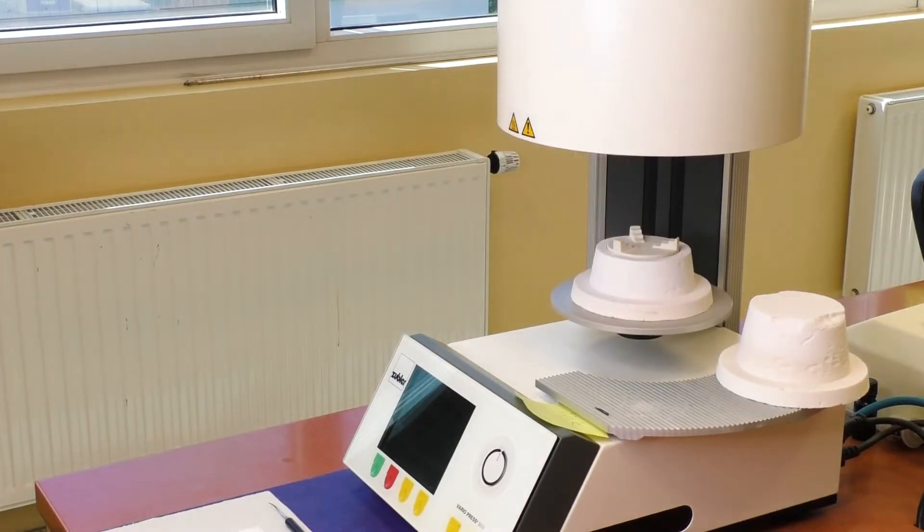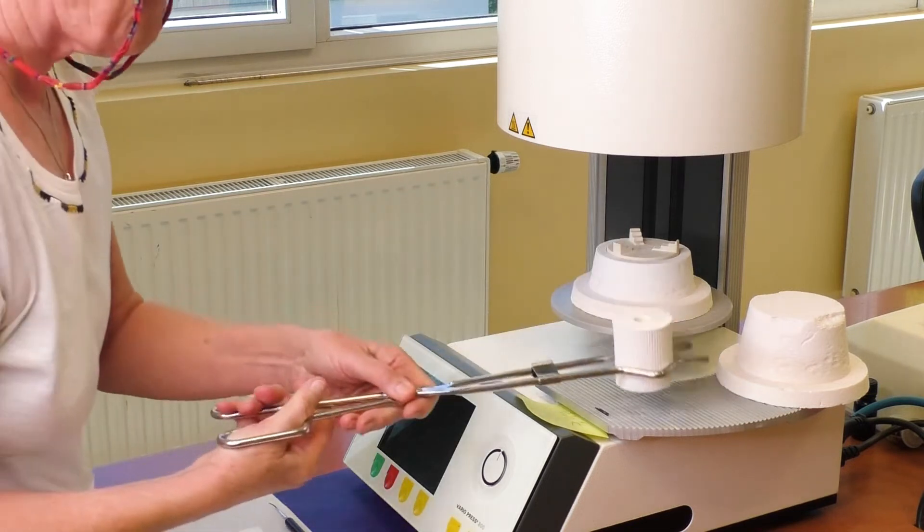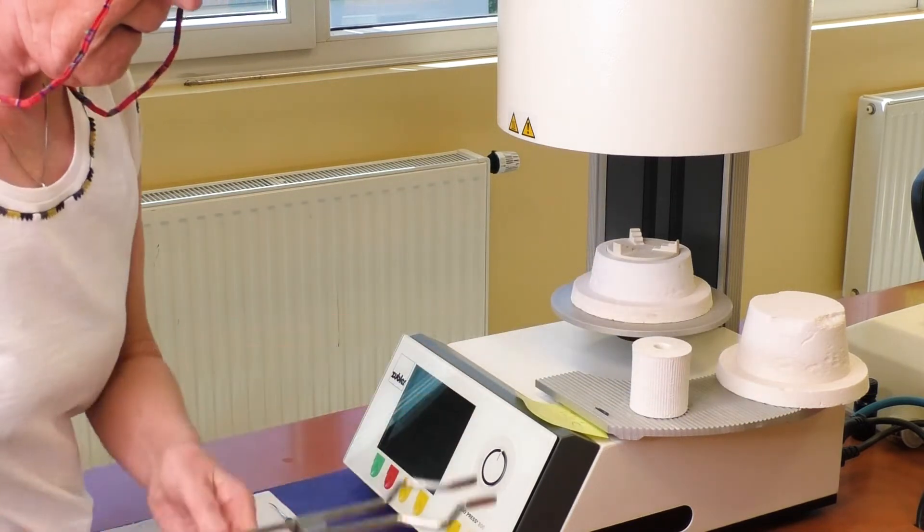When pressing a single ingot, place the ingot in the cylinder with the logo print facing upwards.